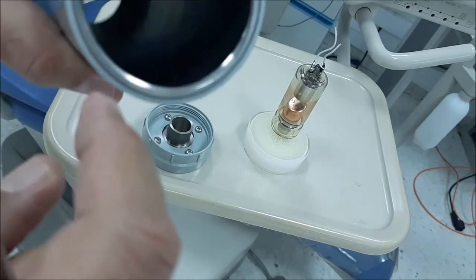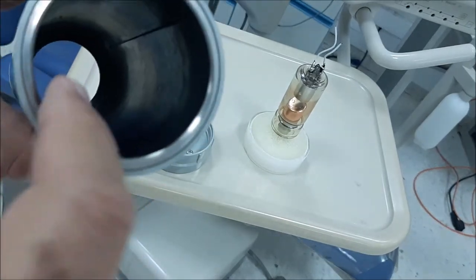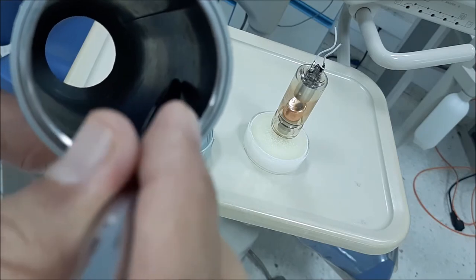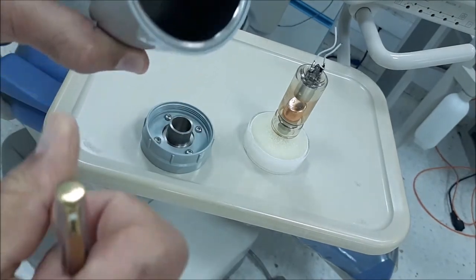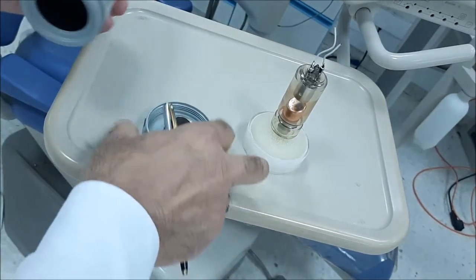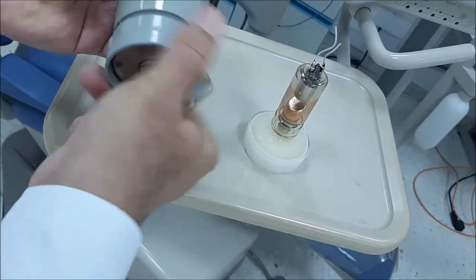It's not metal, this part. See it over here. This part, see the shiny part over here, this is also made of lead. The action of this I'll show you now.